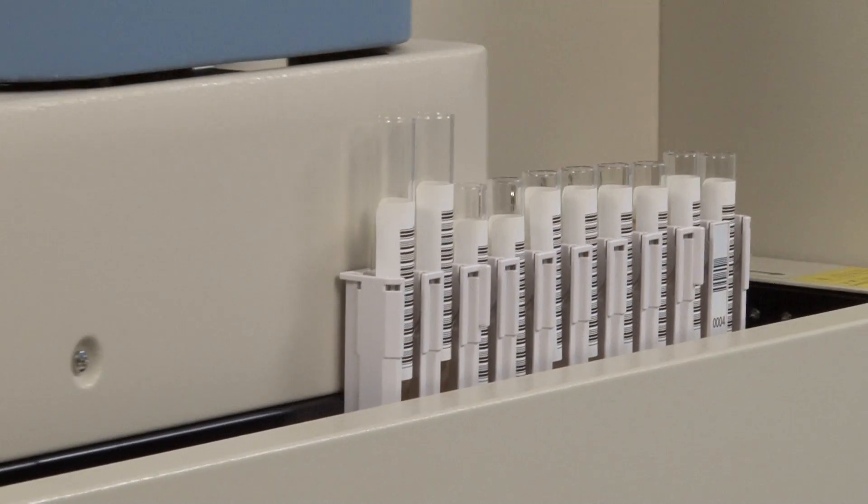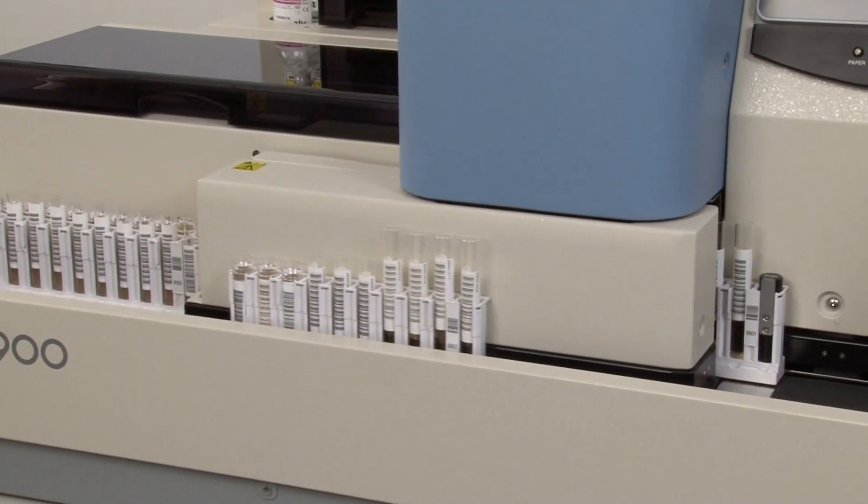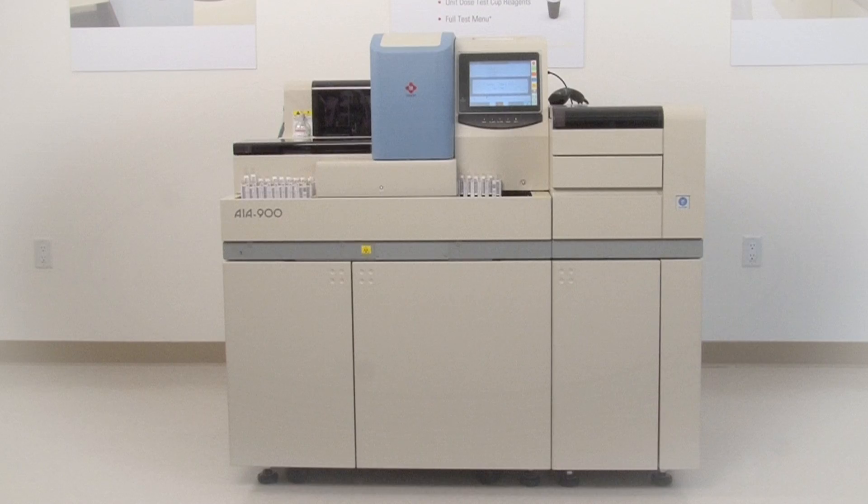TOSO, a pioneer in immunoassay automation, presents the latest breakthrough in advanced immunoassay testing with the AIA 900.